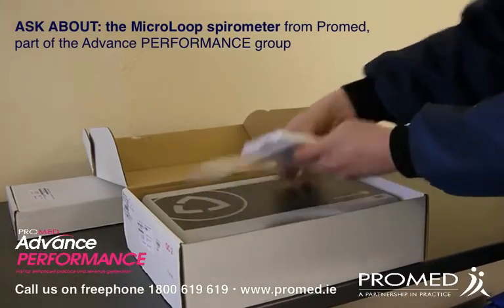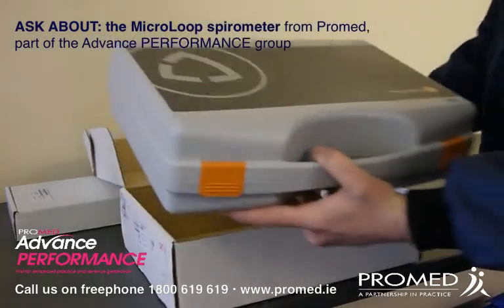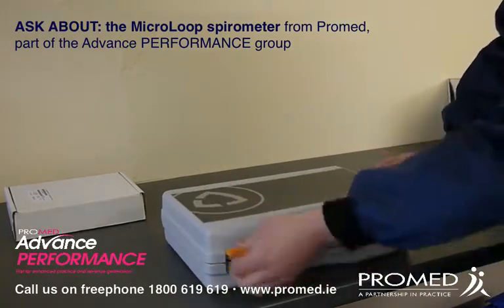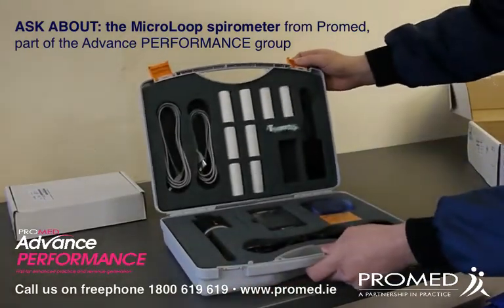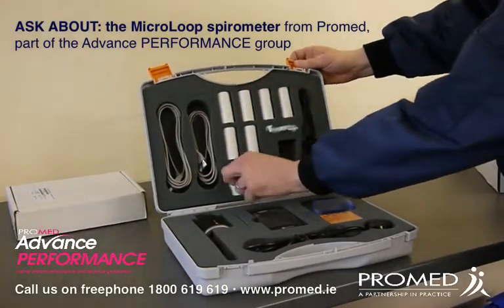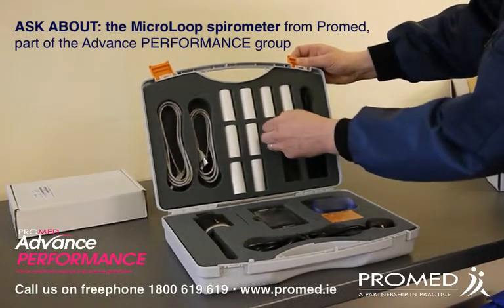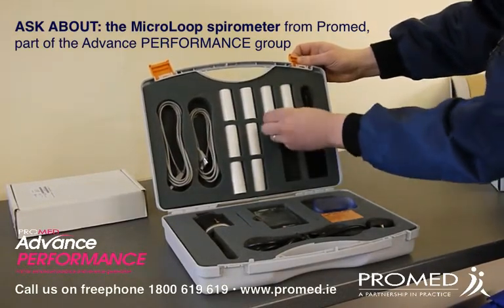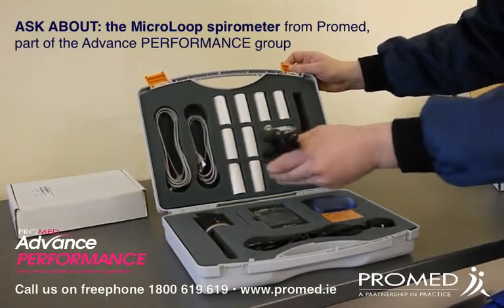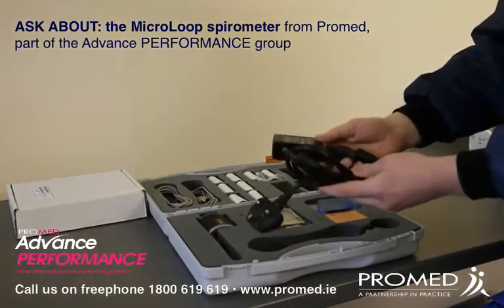If I now just put them to one side, you'll see the case that comes with the unit is quite sturdy and rugged. And if I open up the case, you can see what's contained within. You'll have your USB cables for connecting to the device, you'll have your mouthpieces which can be used again with the device, you'll have a nose plug, and you'll have a power adapter or transformer for your item to charge it along with your electrical cable.